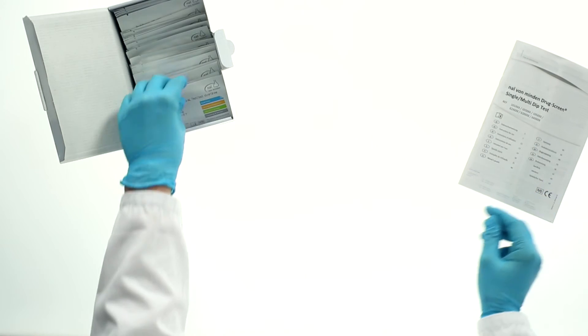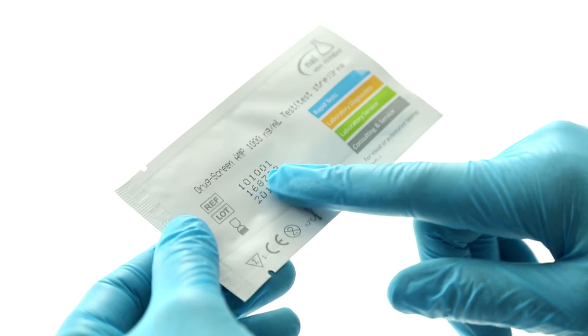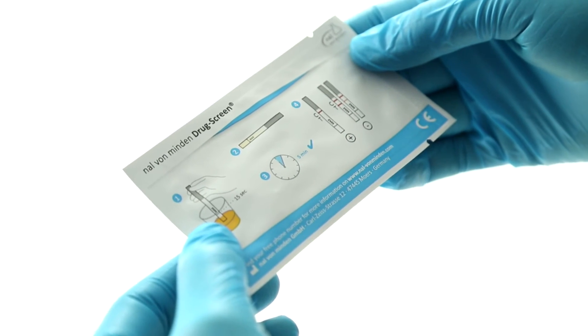Do not use tests with damaged pouches or beyond the stated expiry date. You can also find brief instructions on the pouch.